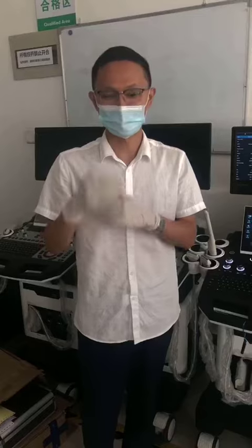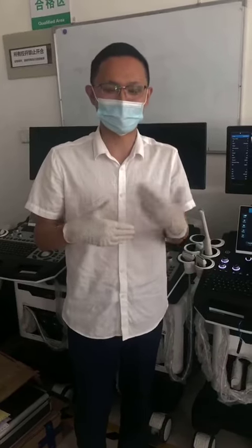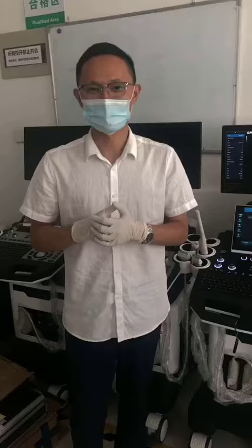Okay, today I will show you how to adjust the image quality. We know every brand of machine has different operations, but their principles are the same. So if you want to get better image quality with an ultrasound machine, I will give you an example, showing it with my ultrasound machine to tell you how to do it. So now let's go.